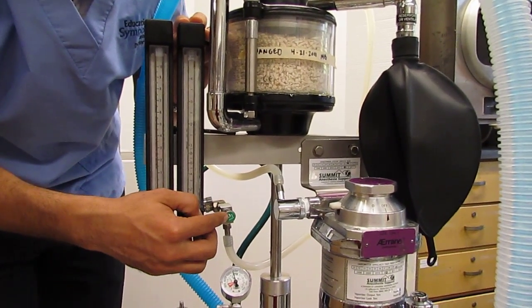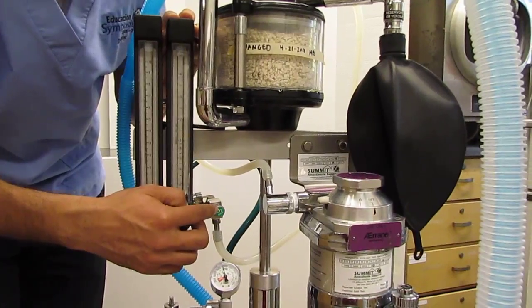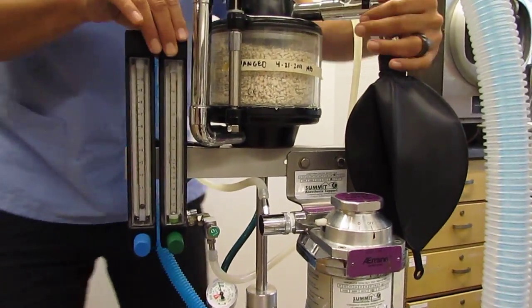When I use the O2 flush, that doesn't happen. So I have to keep that in mind, okay? But let's go ahead and continue through the flow meter.